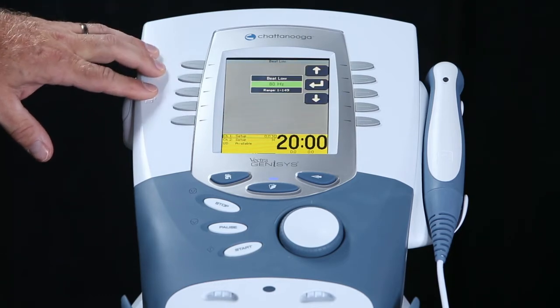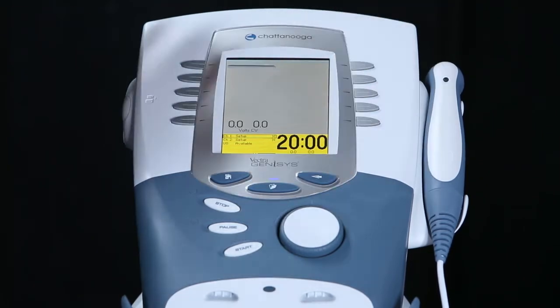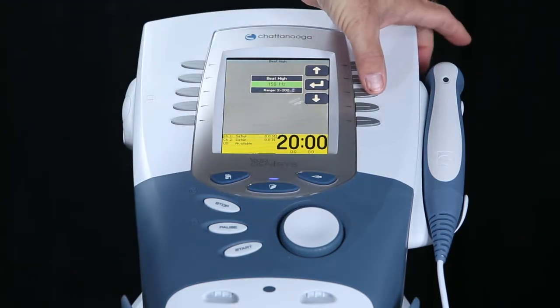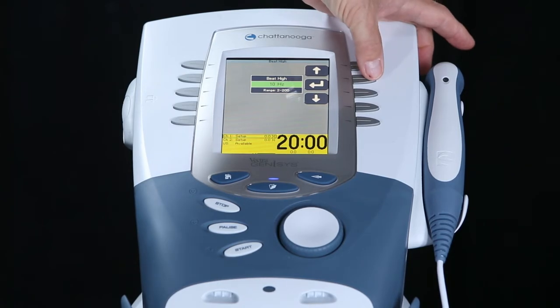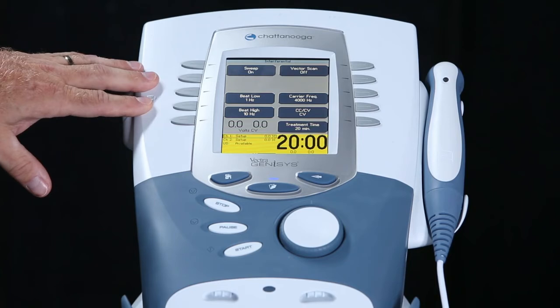In this case, we'll press the 80 for the low number, and we will reduce that number all the way to 1. Press the enter key, then we will press the 150 key. We will now lower the rate to 10. Once we get to 10, we press the enter key. We now have created the opiate release frequency.